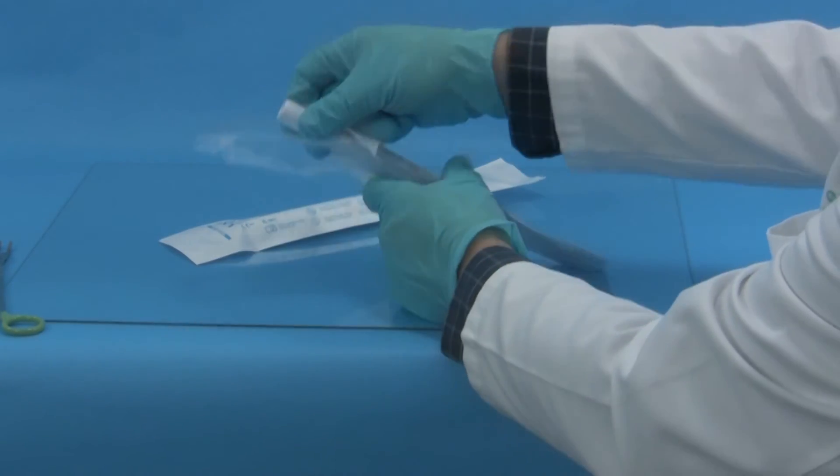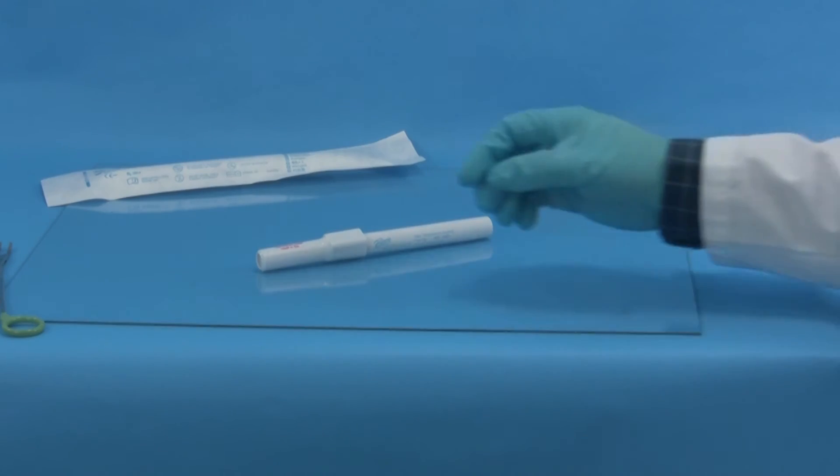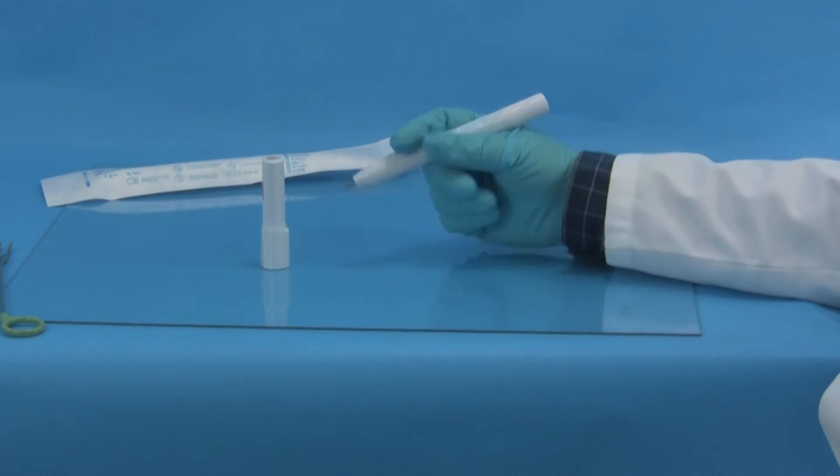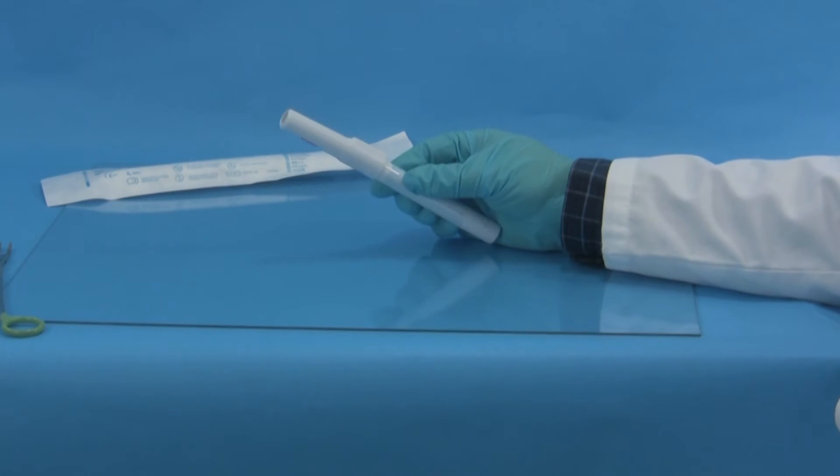Do not open until ready for use. Always retain the cover cap throughout the procedure. Replace it on the cautery when not in use and for proper disposal.